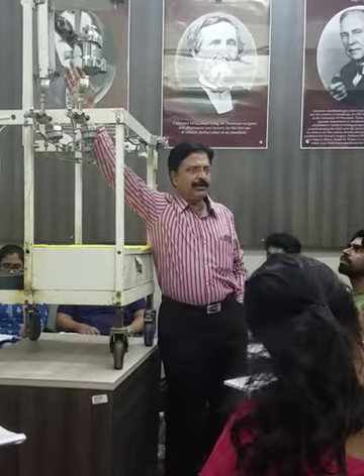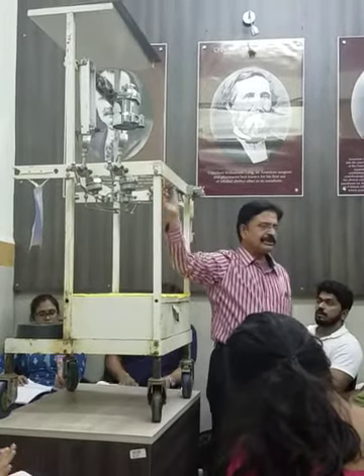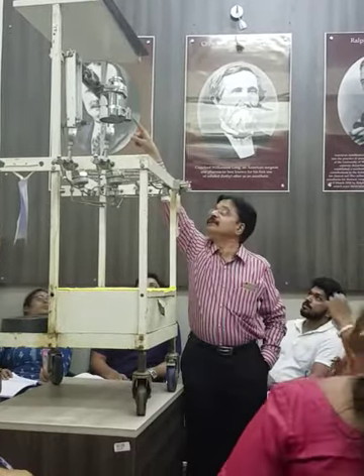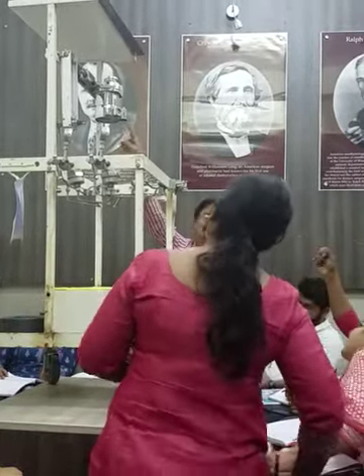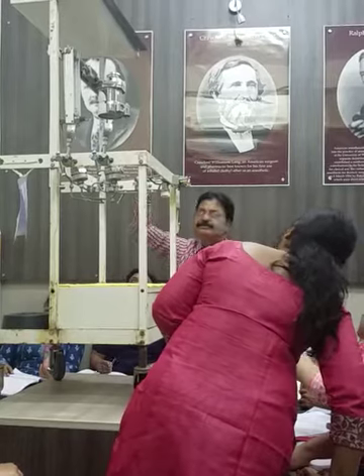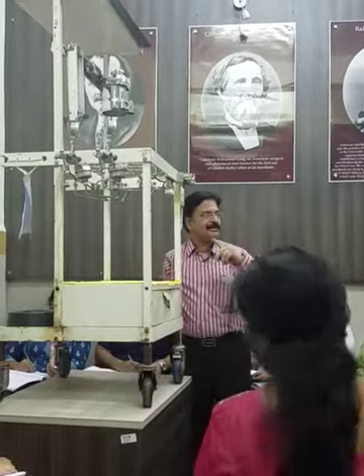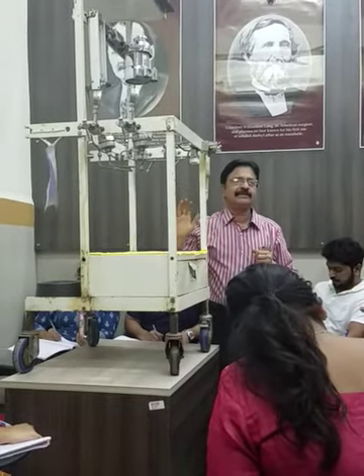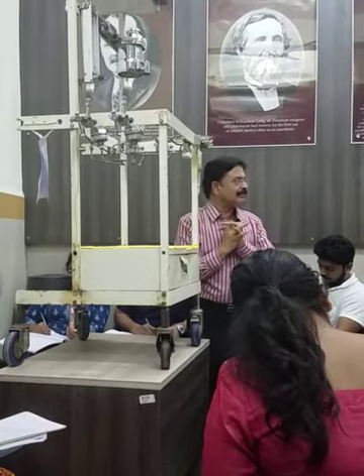Then you have the back bar, with provision for mounting the vaporizers, and on that side you have a check valve and a pop-up valve. The check valve and the pop-up valve are visible here. The check valve is only present in Datex-Ohmeda machines; Draeger does not have a check valve — that is another difference you should always know.